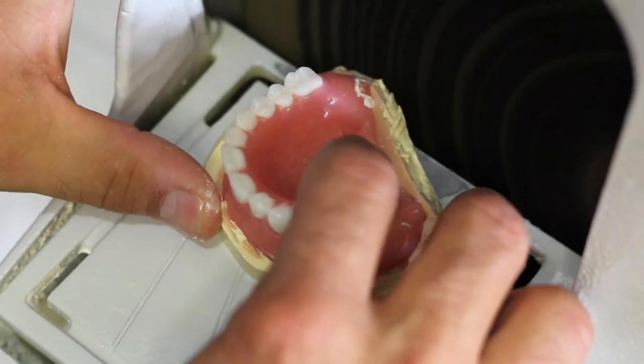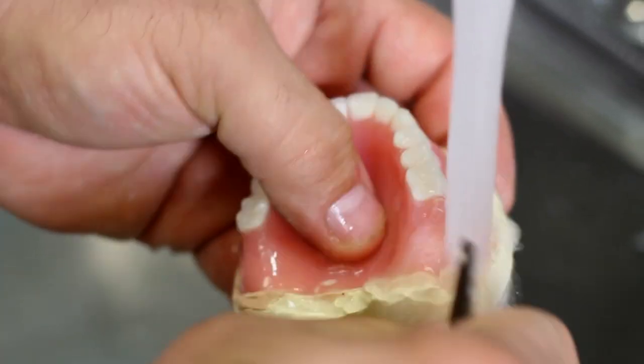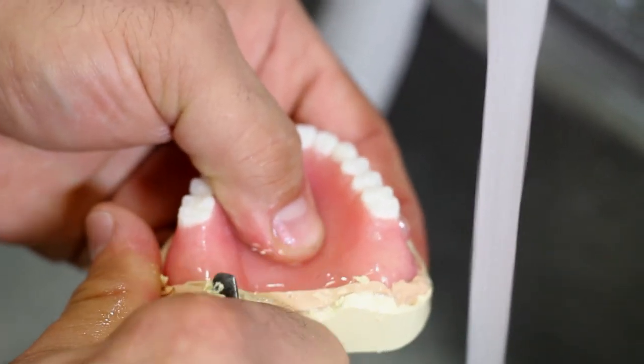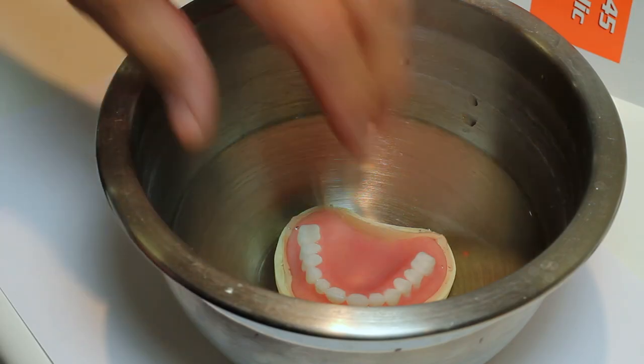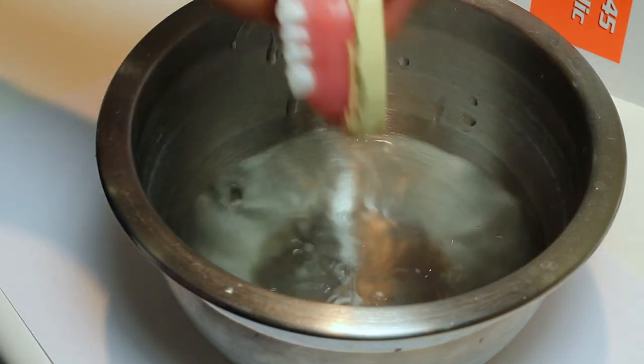Note: Soak the model in water with the denture still in place only after the stone is completely set. This will enhance the density of the acrylic during curing.